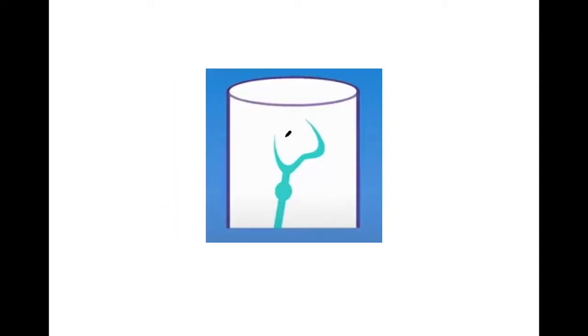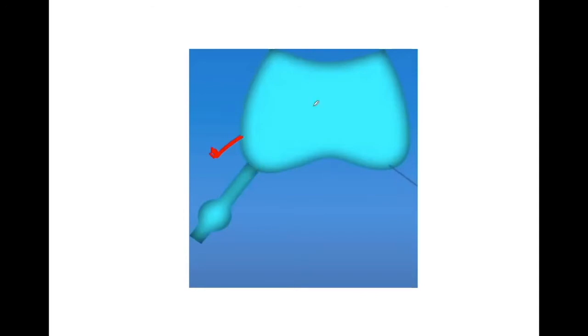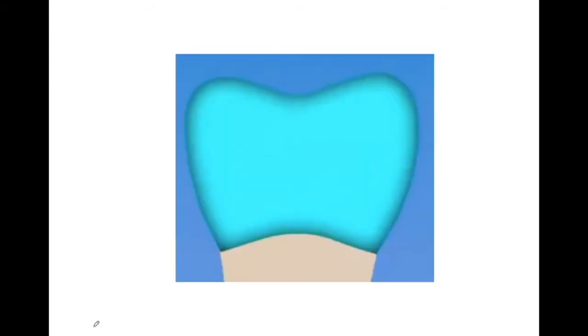This is our prepared casting. Now we'll remove the casting ring, break this investment, and take out the prepared casting. This is our final casting. The sprue former is still attached to this casting, so we remove it — we cut it with diamond burrs. After this, we do the cleaning of casting, quenching, and pickling. All these steps we'll be discussing later. Once we do all these steps, we finish, polish, and place it on the prepared tooth structure.